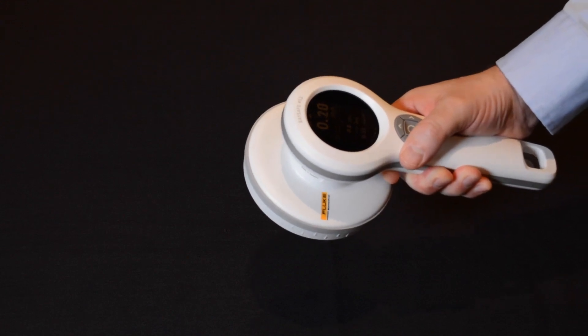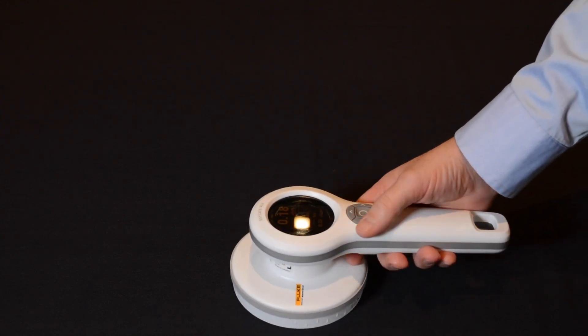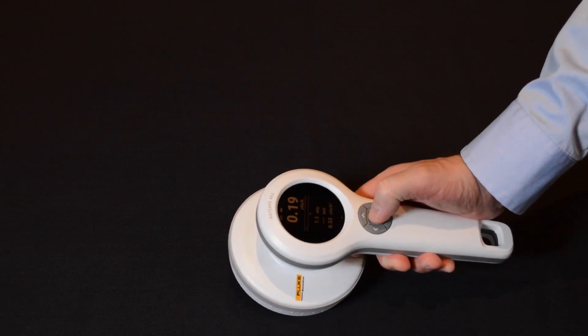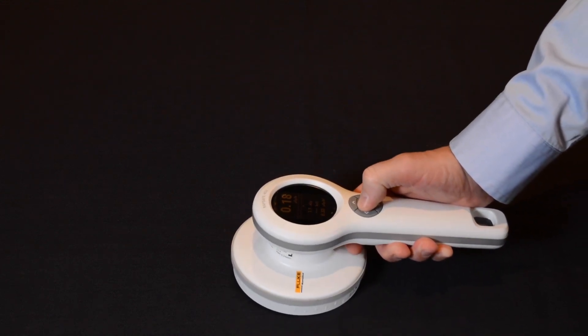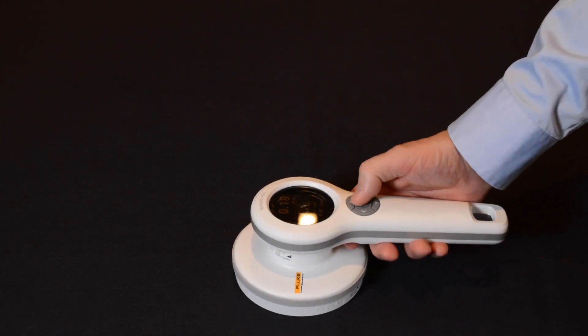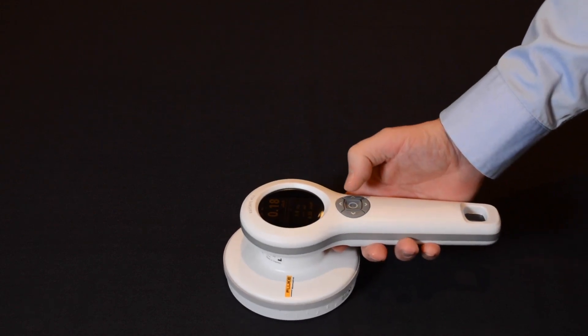The device has a built-in integrated handle on the same level as the display, so you are able to see the readings at all times. You won't cover the display with your hand, which is an issue with other models. The buttons are within easy reach of your thumb when holding the device.